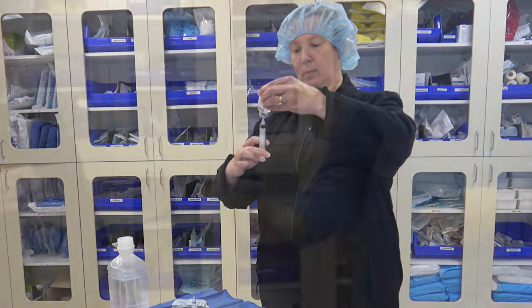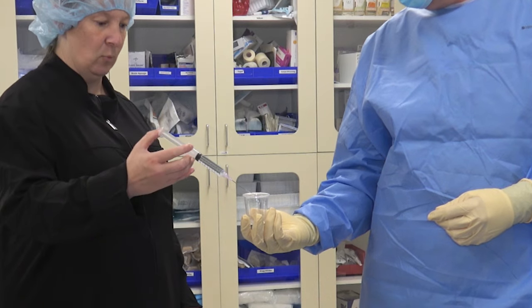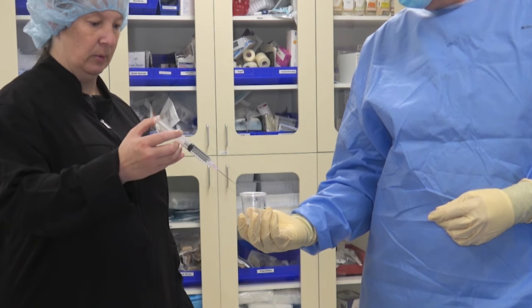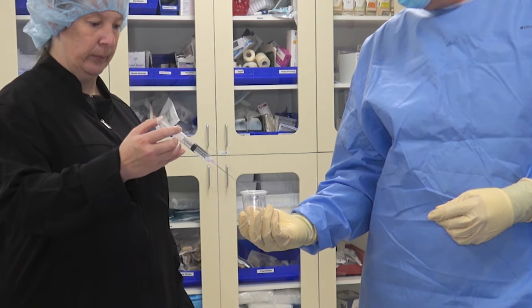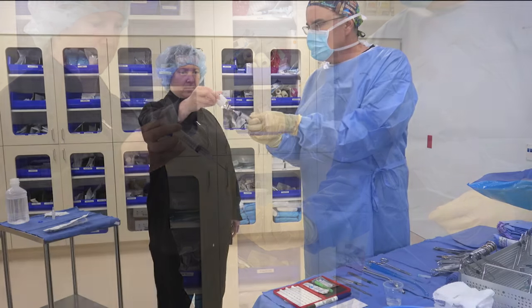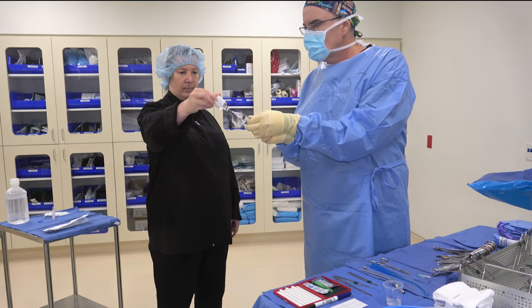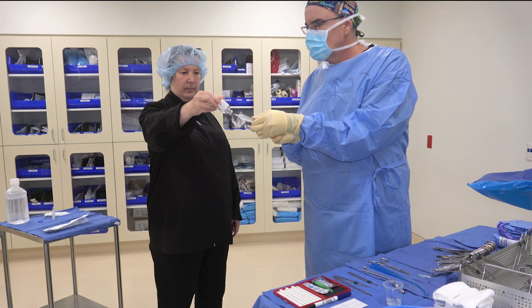For the second method, the circulator will draw the medication into a sterile syringe and then eject the medicine into your cup. Only the sterile needle may pass over your medicine cup. The third method is a little more interesting.